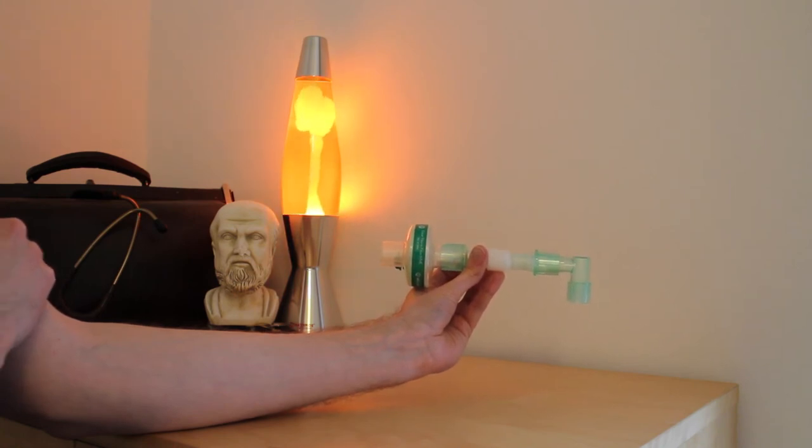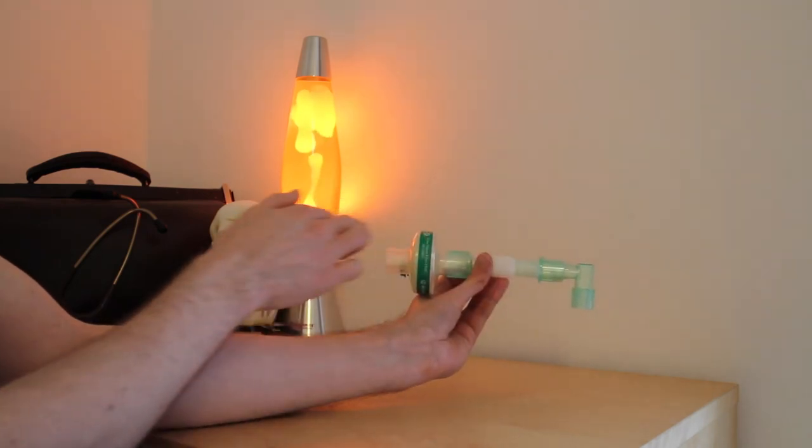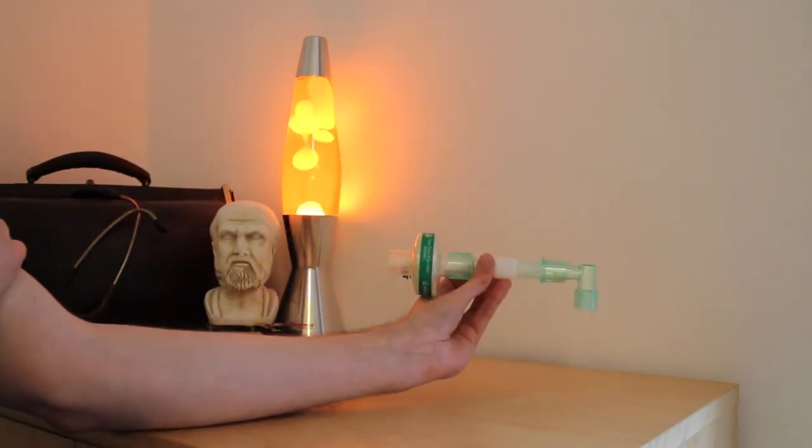Complications of its use include inadequate connections or leaks, particularly at the ends where it connects to other apparatus.